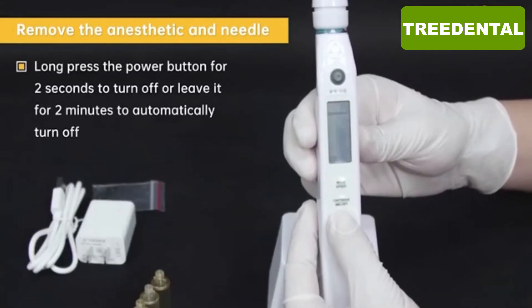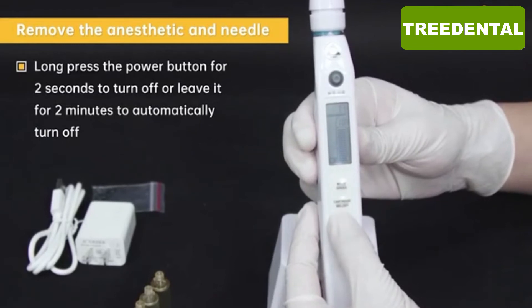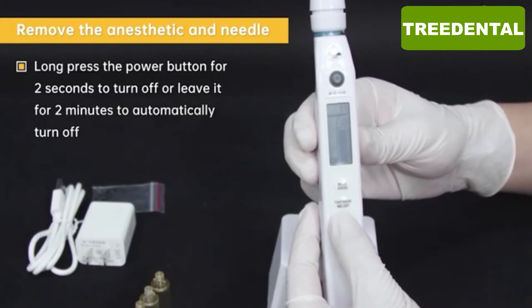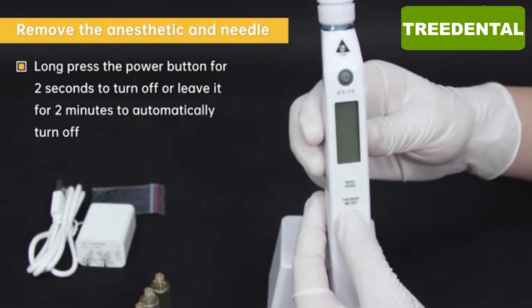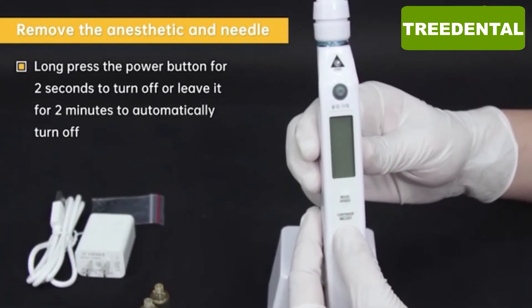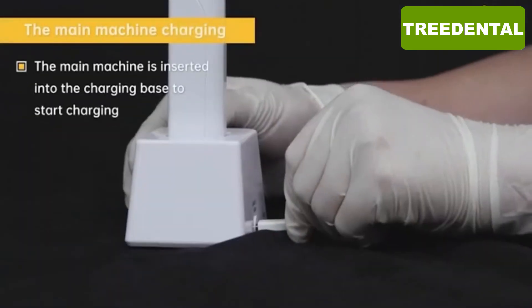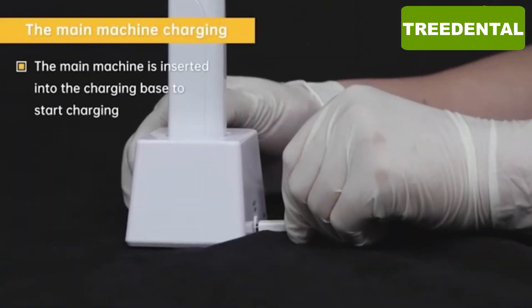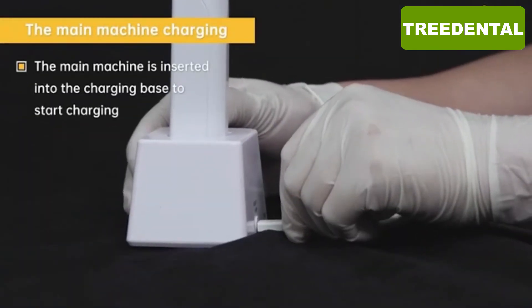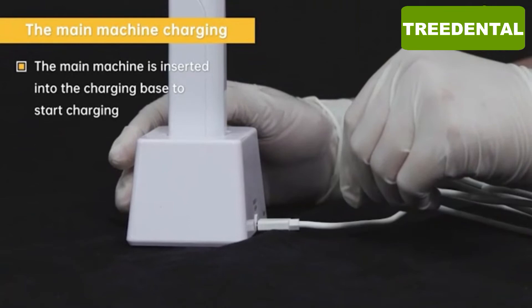Long press the power button for 2 seconds to turn off, or leave it for 2 minutes to automatically turn off. The main machine is inserted into the charging base to start charging.